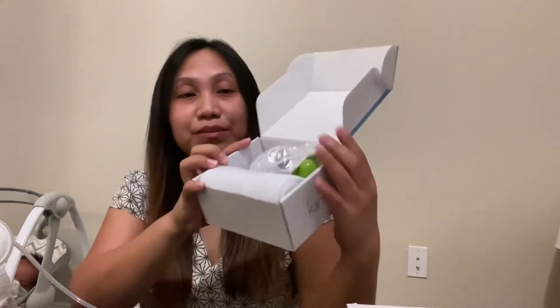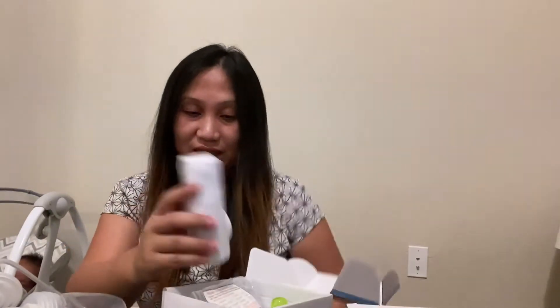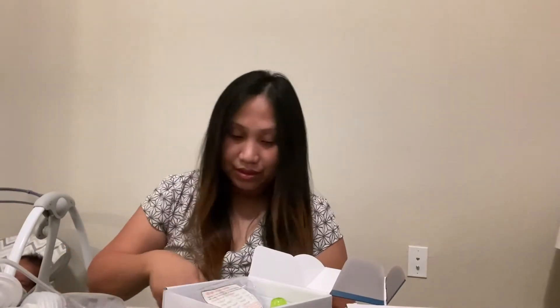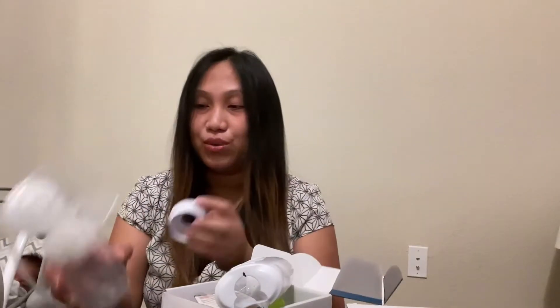What's inside the box — it has different connectors. What I'm using is the Spectra S1 pump, so we'll be needing this specific connector. I only have one set here so I'm just going to show one.